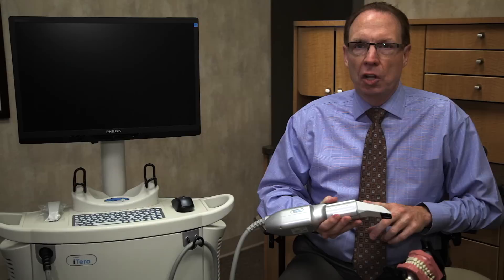The benefit to you as a patient would be the fact that you will have a crown that fits better, it looks better, it lasts longer, and is a much better return on your investment in your oral health.